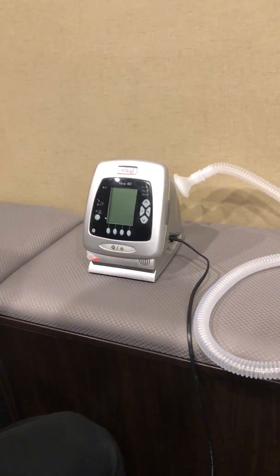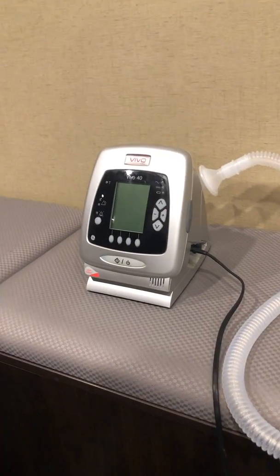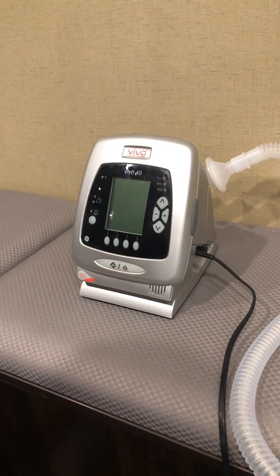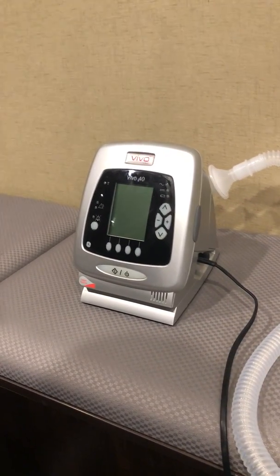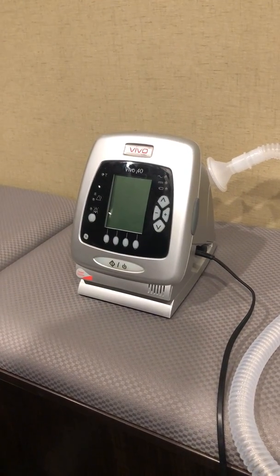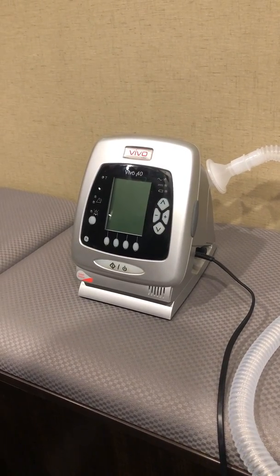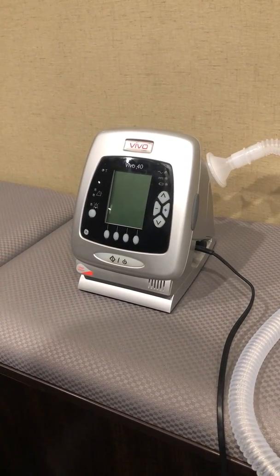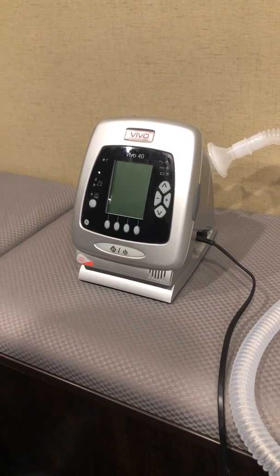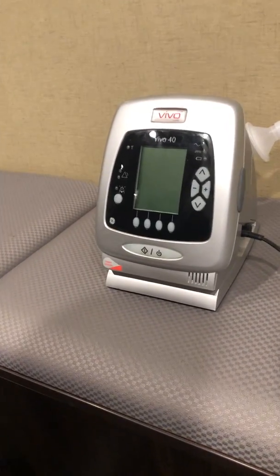Today we're going to go through the Vivo 40 setup for an invasive patient. Typically the Vivo 40 is something we would use non-invasively — it has an ST mode with a targeted tidal volume — but in some situations it can be used invasively as long as the patient is spontaneously breathing. We're going to go through how to set up a patient that has a trach or is intubated but spontaneously breathing.